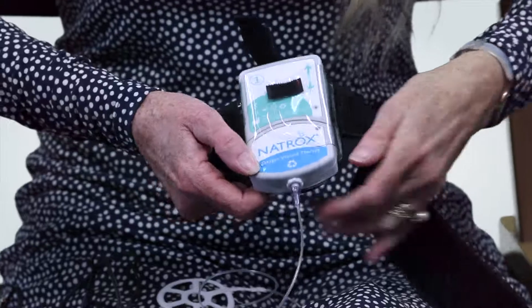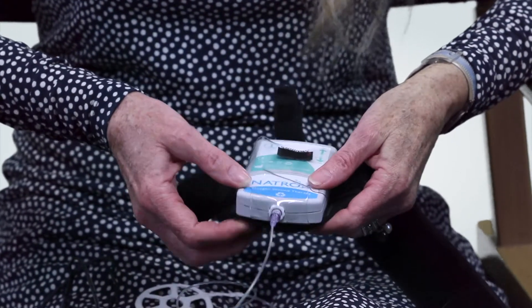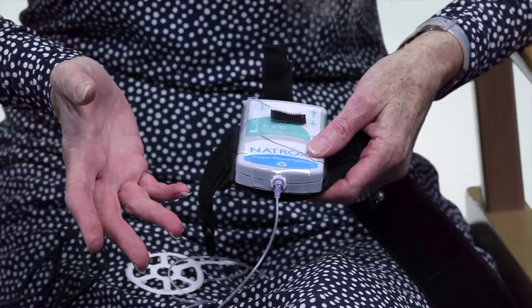The holster for the device, which I strap to my leg because it is just so easy. It's so comfortable, you can't even feel it — you wouldn't know it was there. Put the tube on like this, turn it around and strap it, depending obviously on where your wound is.